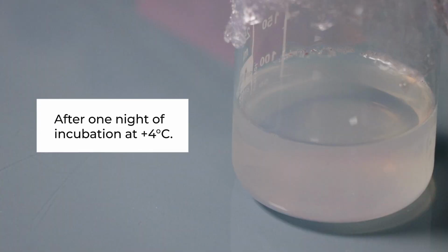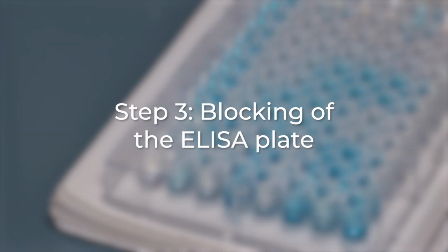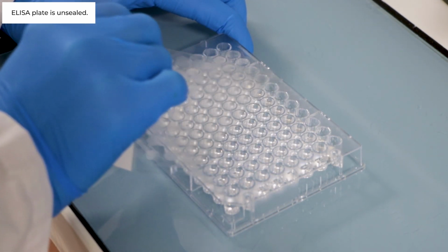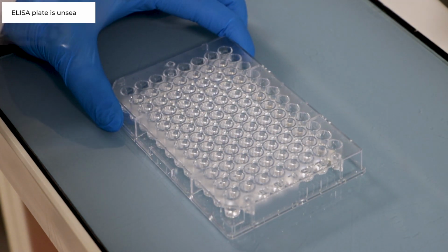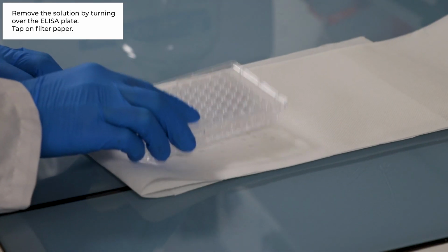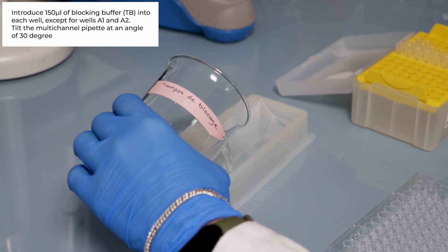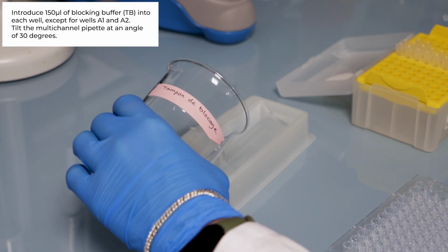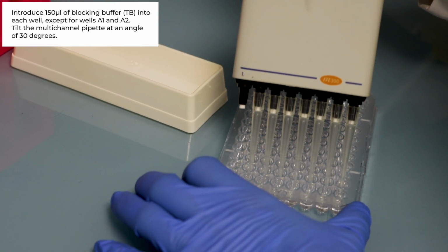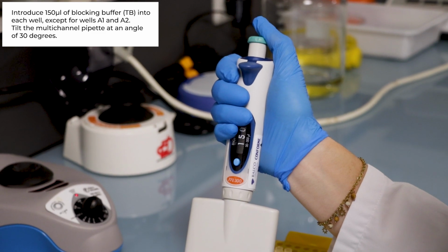After one night of incubation at 4 Celsius degree, step number 3, blocking of the ELISA plate. ELISA plate is unsealed. Remove the solution by turning over the ELISA plate and bang on absorbing paper. Place 150 microliter of blocking buffer into each well at the exception of wells A1 and A2. Hold the multi-channel pipette at an angle of 30 degrees to avoid air bubbles.